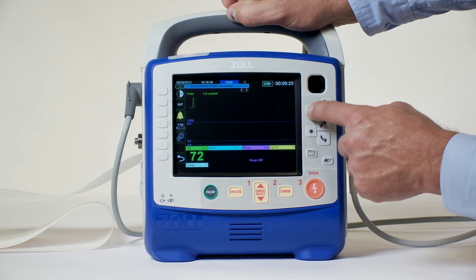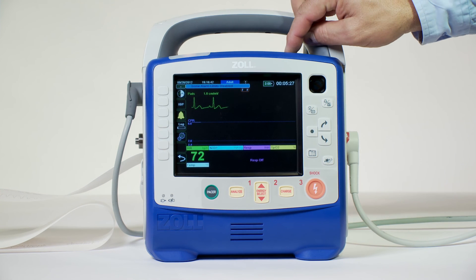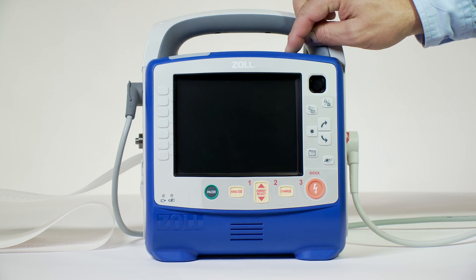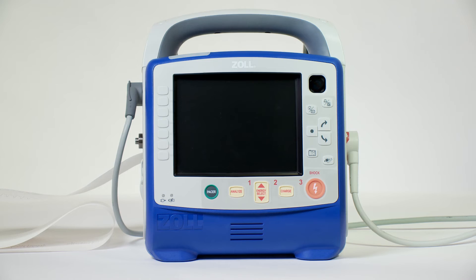To transfer it back to AED mode from manual mode, power down the unit for more than 30 seconds, then power it back up.